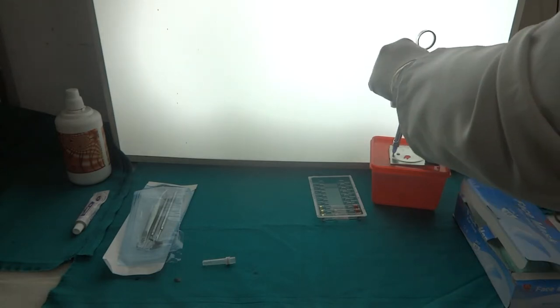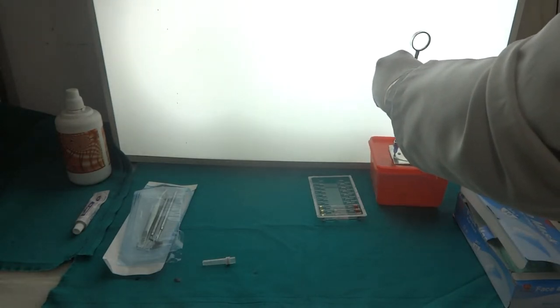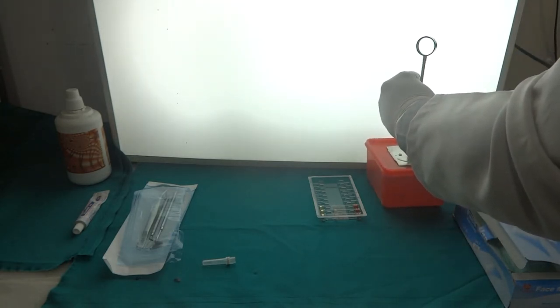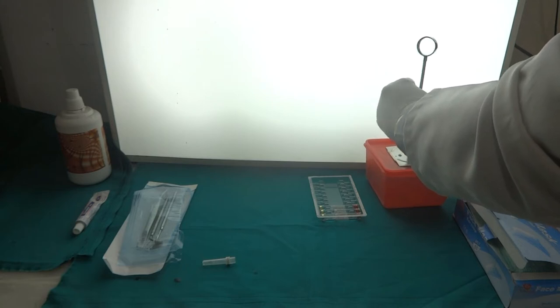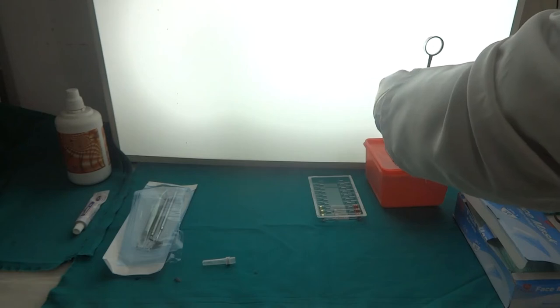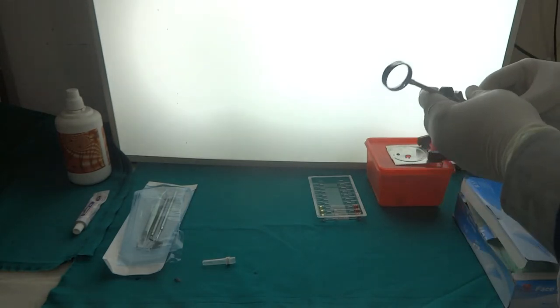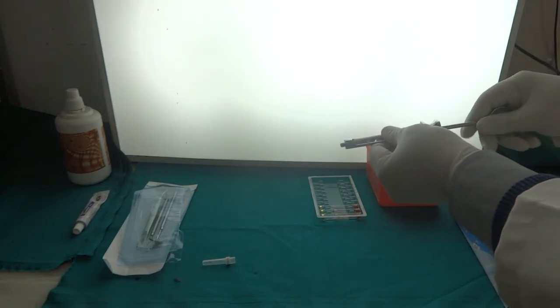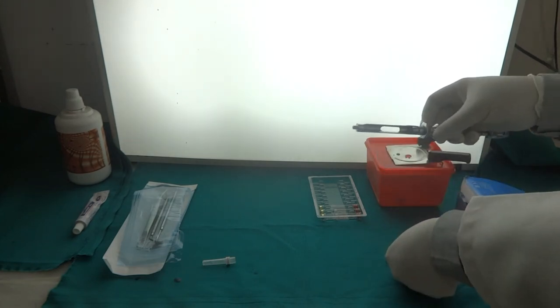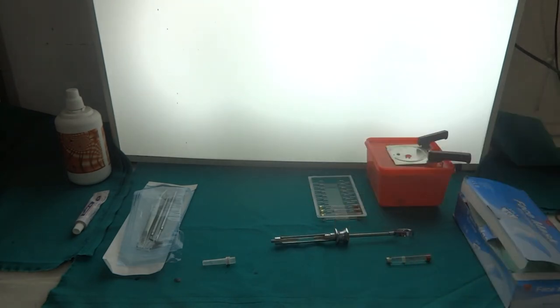First of all we will cut the needle and then we will disengage the needle from the needle adapter. And now we are going to unload the cartridge and we will save it in another sharp container.